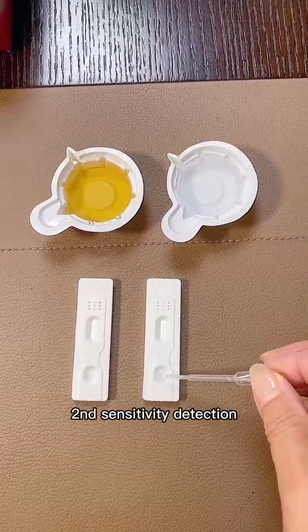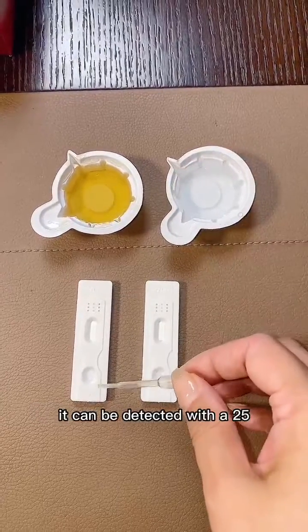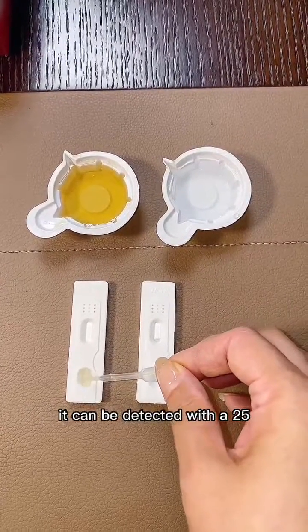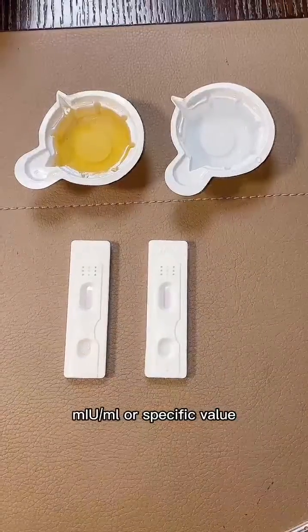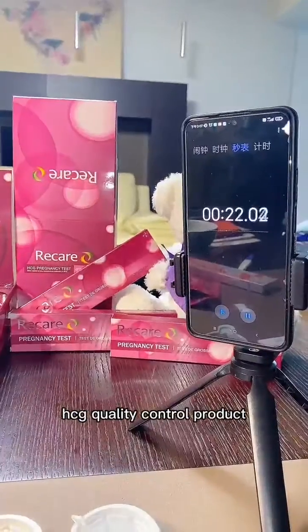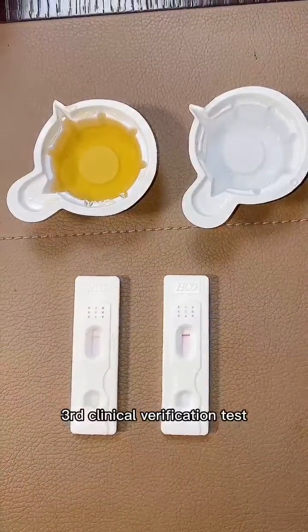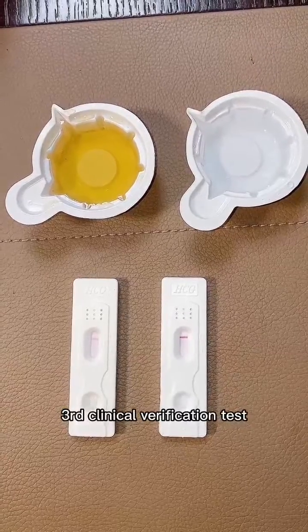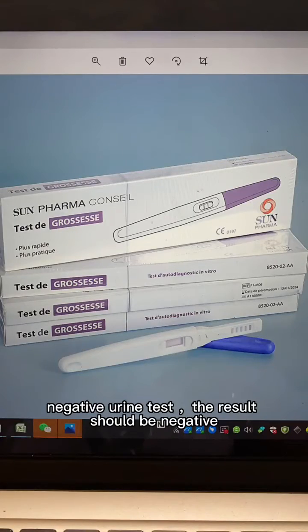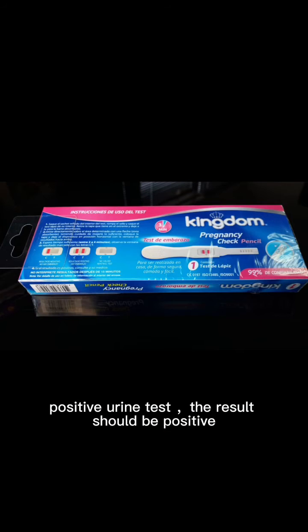Second, sensitivity detection. If there is a quality control product, it can be detected with a 25 mIU per milliliter or specific value HCG quality control product. It should be positive. Third, clinical urine verification test. Negative urine test, the result should be negative. Positive urine test, the result should be positive.